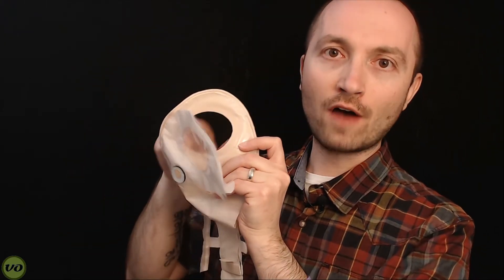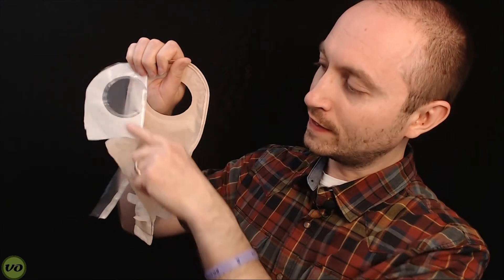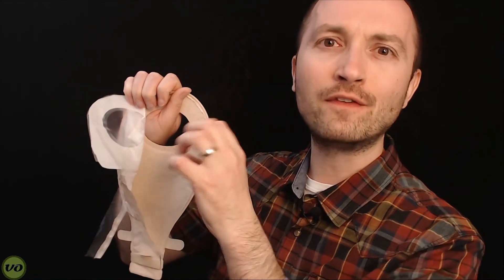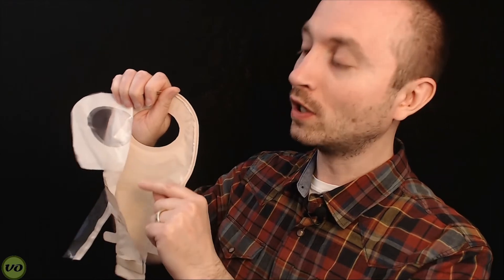The hole for your stoma is in the back — your stoma would stick out here. What you have is a first layer of plastic that helps to divert your stool down. One of the really cool things is that once it goes down, it can't easily come back up to get to the filter, which is usually the problem with clogged filters. The way this internal bag is designed prevents that from happening. They call it the non-return valve, and it seems to work pretty well. Looking through the inspection window, I don't notice any pancaking or output staying stuck near the top of the bag, which I would normally see.